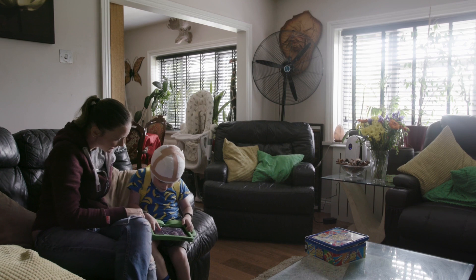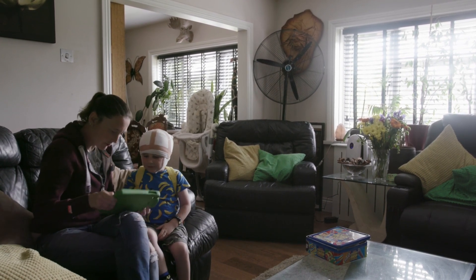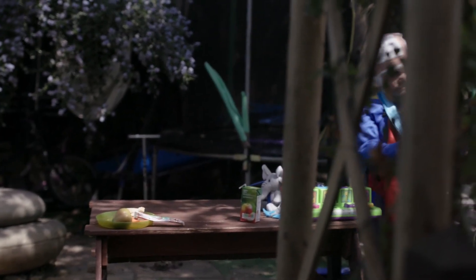The results are usually ready within four weeks. Yes, it's daunting, but I promise you — I found it quite easy after the Evelina showed me how to do it properly, and once you turn it on, it's honestly really easy. Since we've been home he's been on the trampoline, he's been on the slide, he's been running around, he's been doing every single thing that he does on a normal day and it hasn't stopped him. That's the best part.